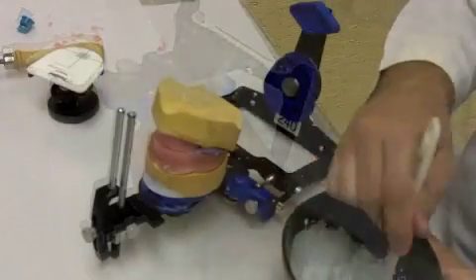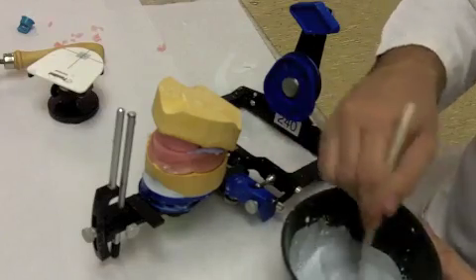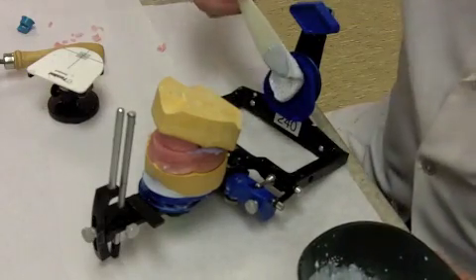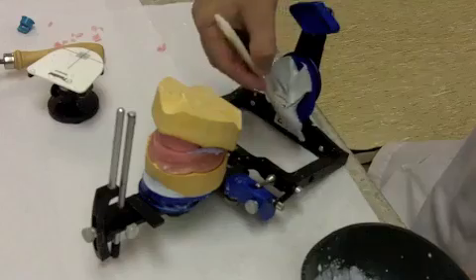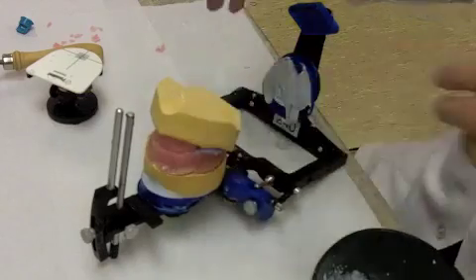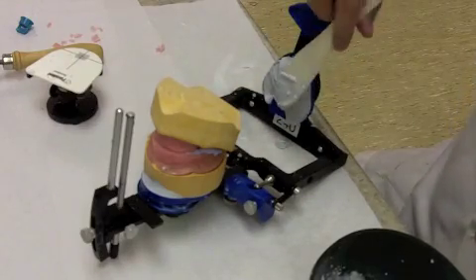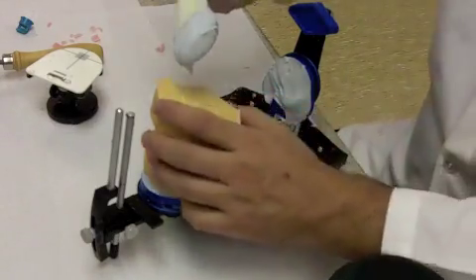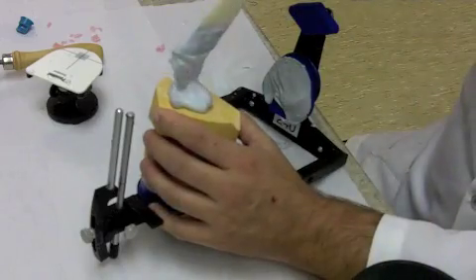Then we want to mix up some stone, just as we've done before. And in this situation, there's plenty of room, so we're going to add some, again, to the mounting plate itself. And then we're going to add a little bit to try to be not as messy as I am here. You're going to place a little bit of stone on the actual cast itself. And then later go back in after that is cured, and then you can put a nice veneer of the material on there and make it look nice and clean and neat.